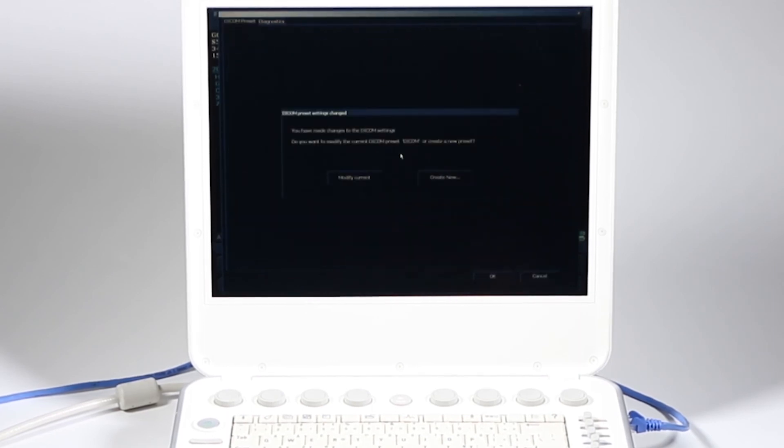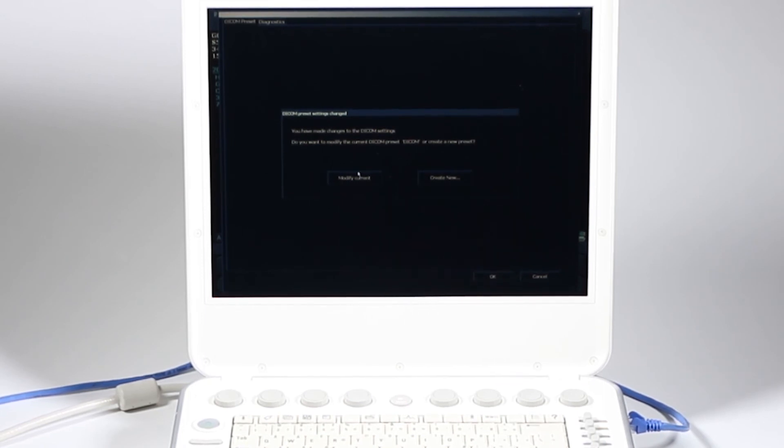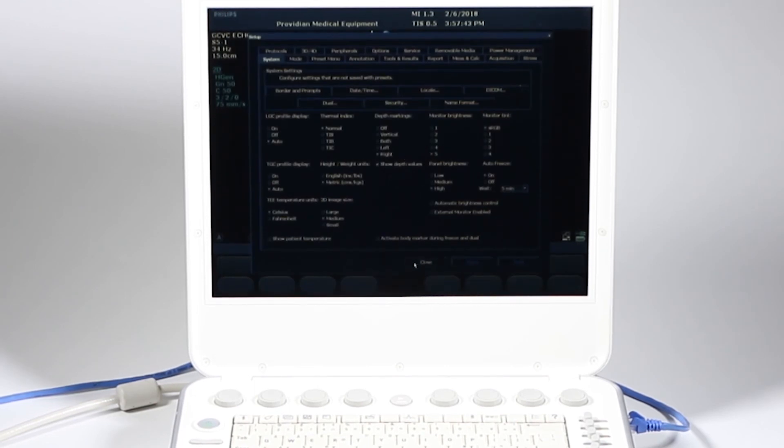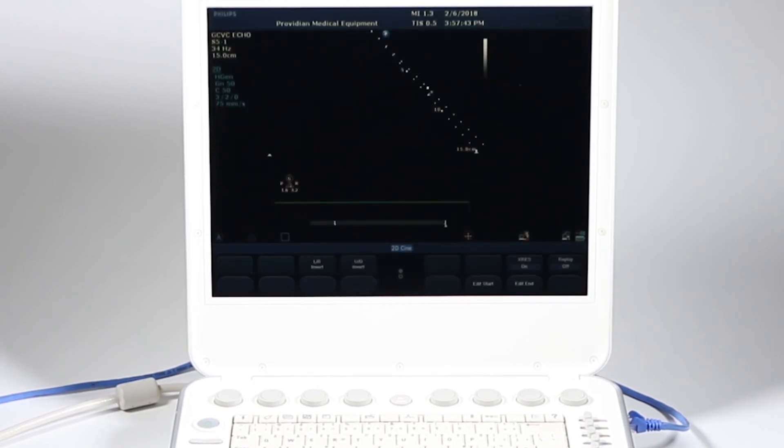I know it all works. I click OK. And then I modify the current because I made changes to that. I'm going to close. And next we'll get into exporting the images.